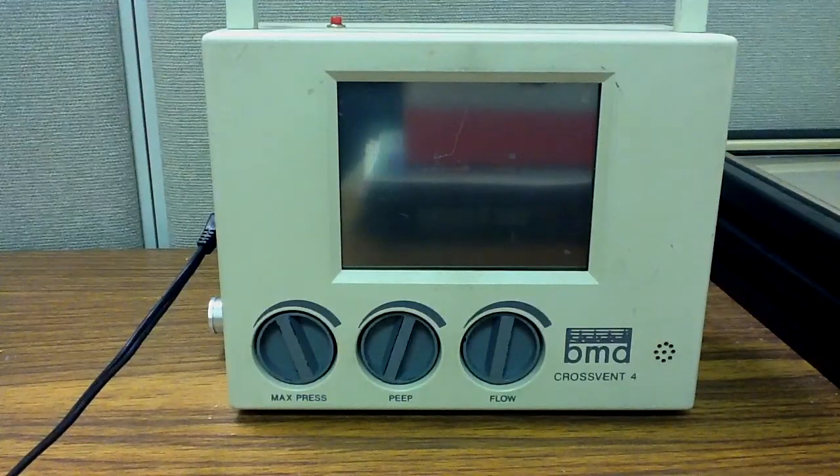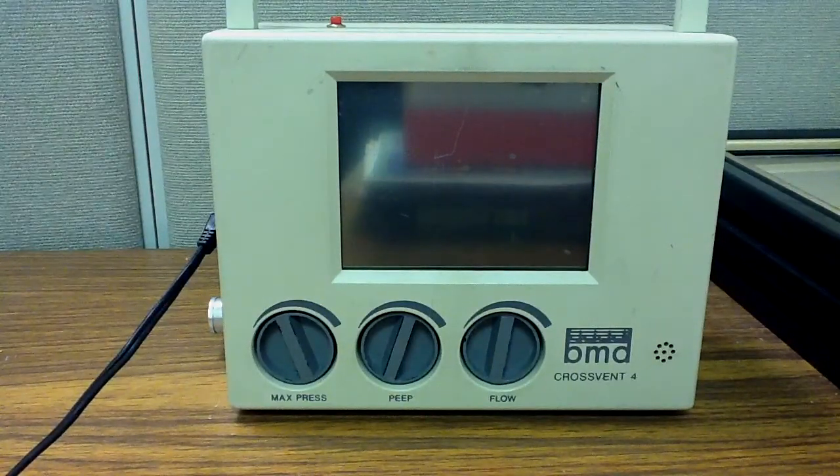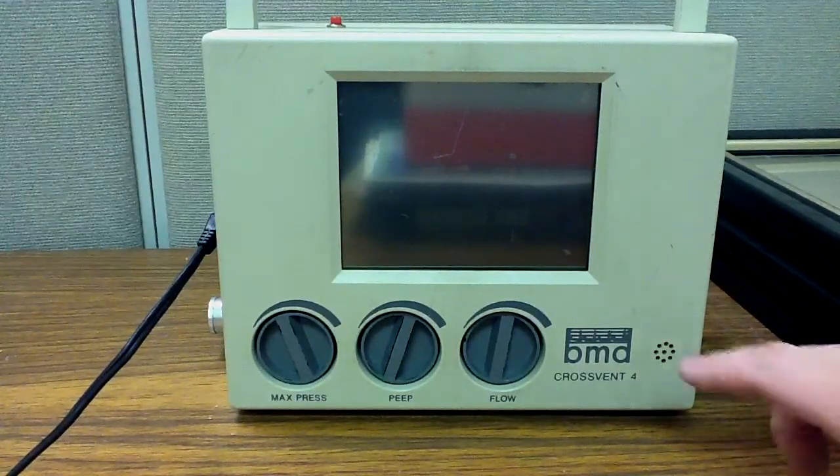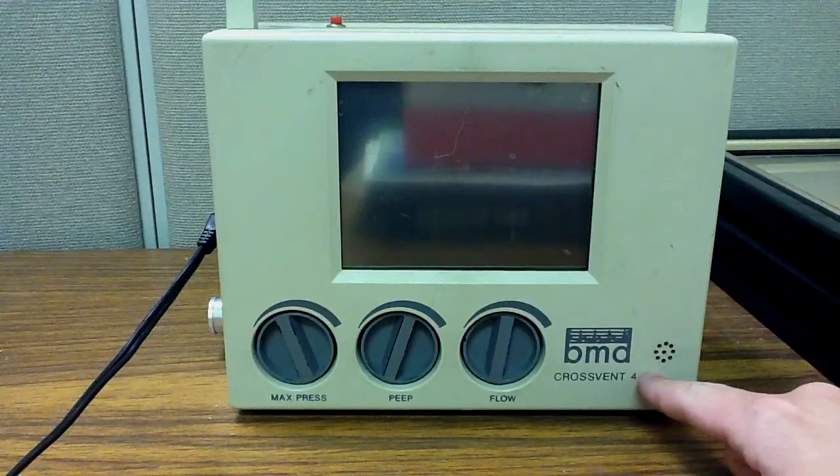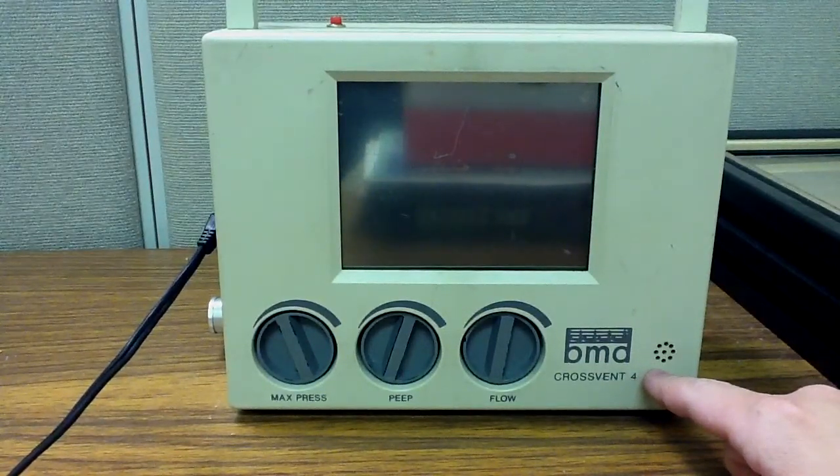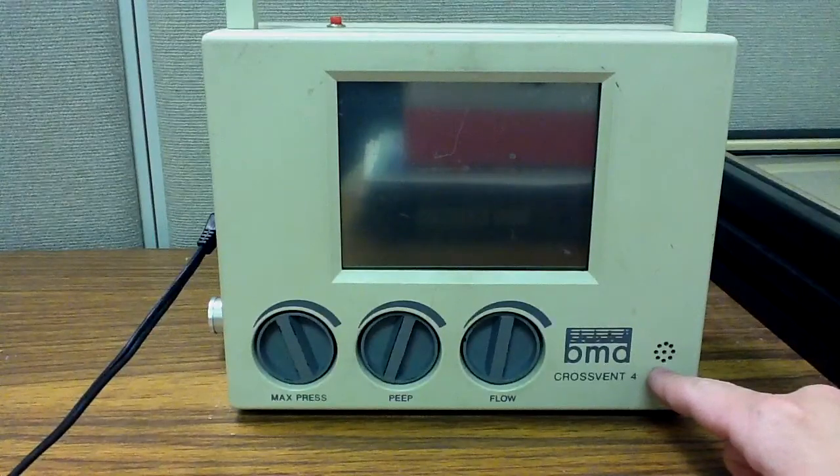This is actually a ventilator that I've used for several years during transport. I started out using the Biomed devices or the BMD CrossVent 4 in 2006 when I started flying. So I'm fairly familiar with it and I thought I'd do a series of videos to help him out and his colleagues that are transitioning to this ventilator.